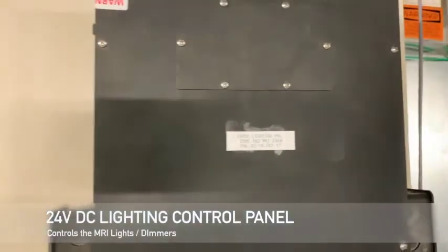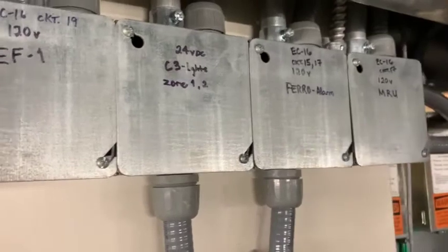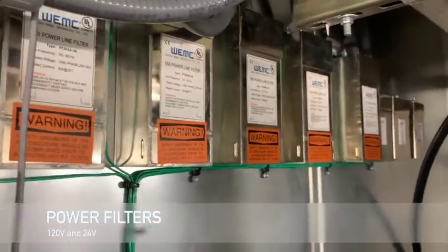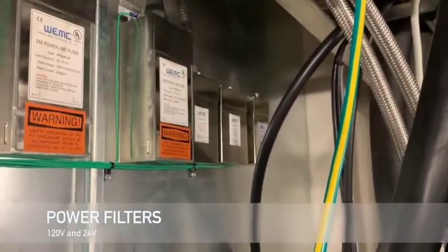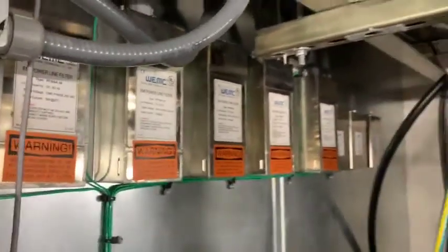Here we have the 24-volt DC lighting control panel. Think of it like the brain for the lights. Above are the circuits properly labeled. Shown in this video here are power filters. There are two types for this MRI. 120 volts for the power and 24 volts for the controls inside of the MRI scan room.